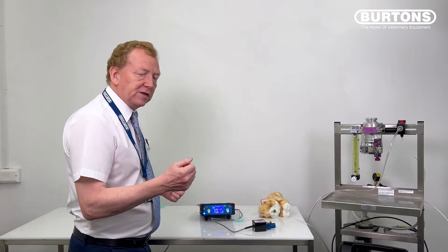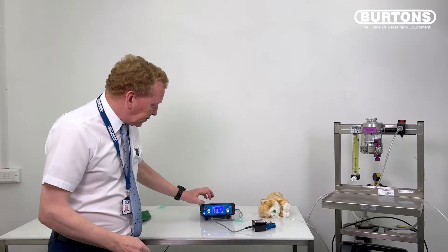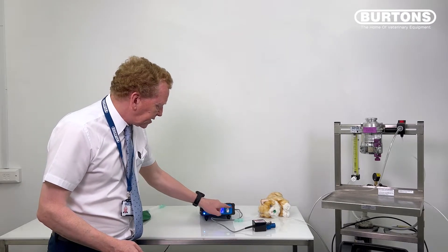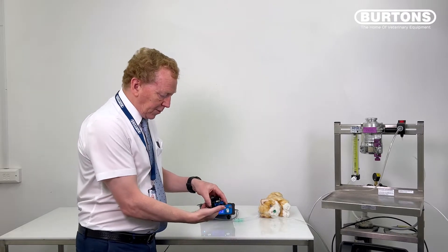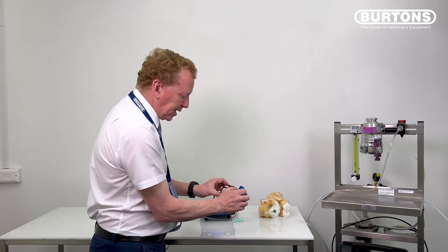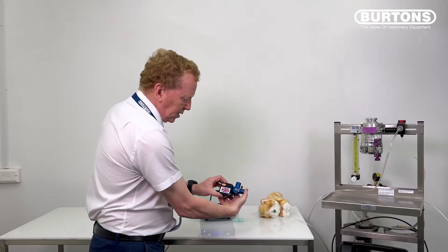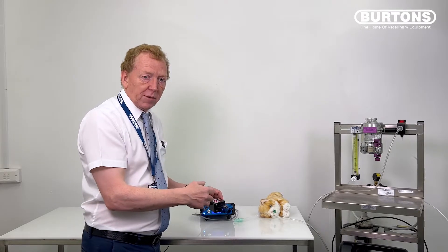Now, how do we do a leak test? We need to do a leak test on our circuits in the morning — on Merlin and on this unit as well. Set the trigger pressure to 10, commit it, and put the unit to IPPV. Take the valve with this port blocked off, or put your finger over the end, and just squeeze with your thumb very gently. The compression of gas from the movement of your thumb is enough to raise the pressure by 10 centimetres and trigger the ventilator. The movement of air is probably less than 0.1–0.2 mils, so if there's a leak it will show up — this is a very sensitive test.